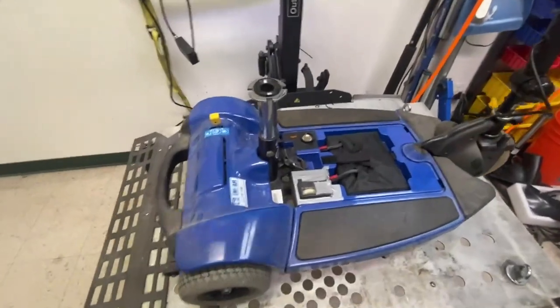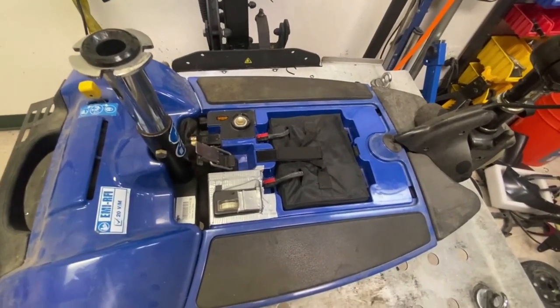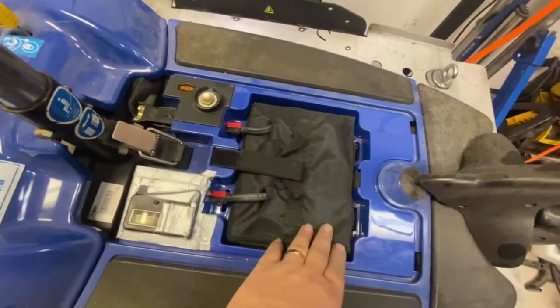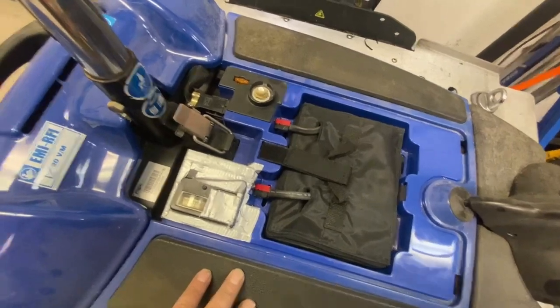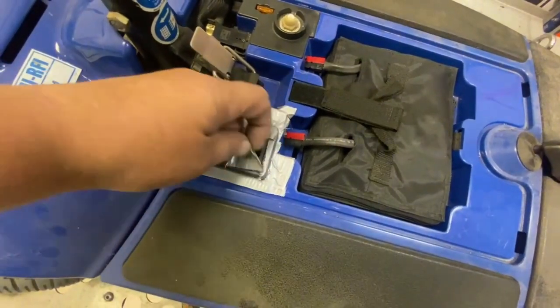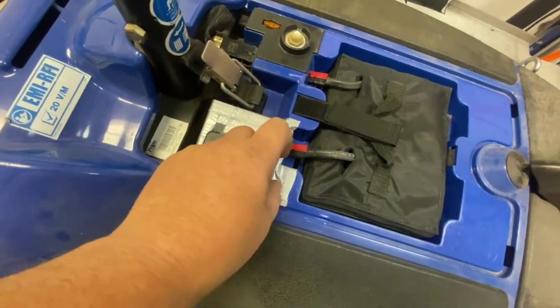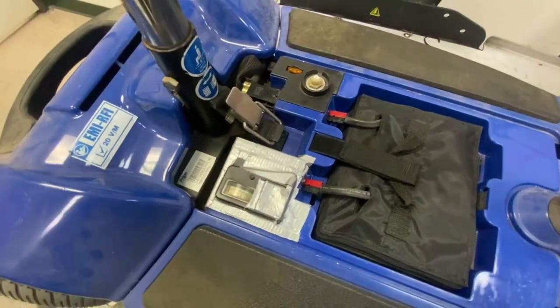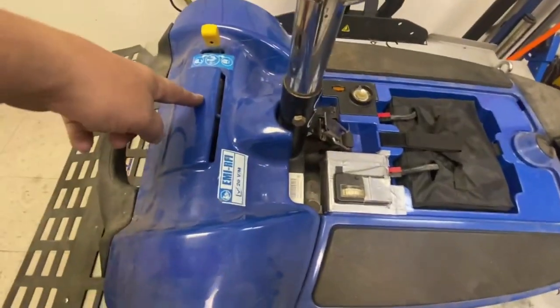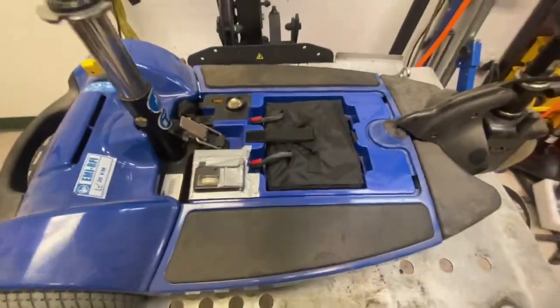I've taken the seat off just to get better access to the floor shroud of this Dart. I put two batteries in just to test it — plugged them in. Not the best design; I hate these cloth packs, they're kind of awkward. As you can see, the lady put some duct tape on there — another duct tape special — and a little flap for a cover of the charge port.